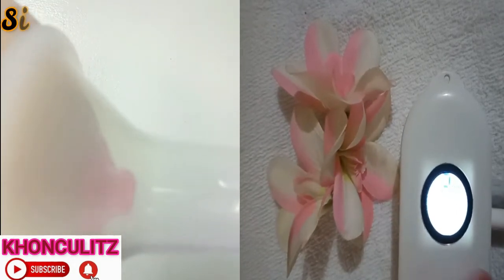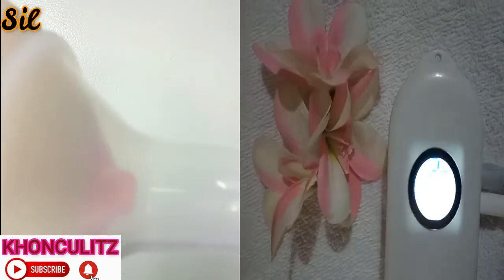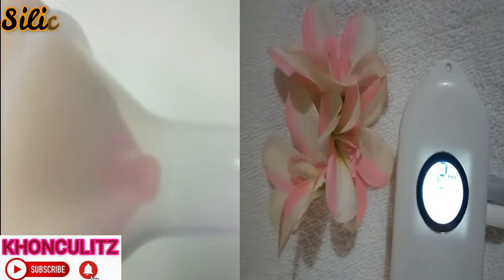What's great about Wise Mom Pocket is you don't have to manually shift from massage to expression. Because after two minutes, it will automatically shift to expression mode.